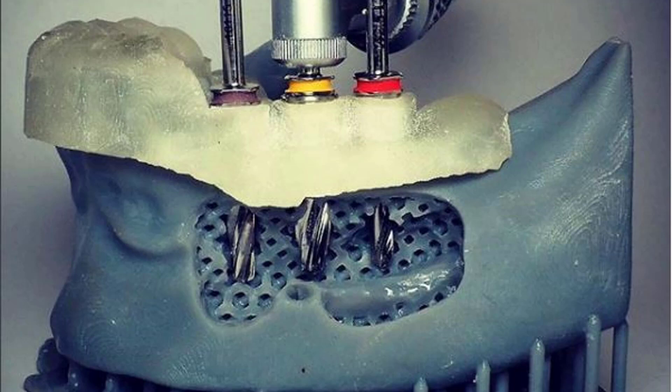Hey, this is Dr. Corey Glenn and I'm going to show in this video how to make what I call a cortico-cancellous study model that can be 3D printed. I find these to be really useful for not only demo models but also practice surgery models.